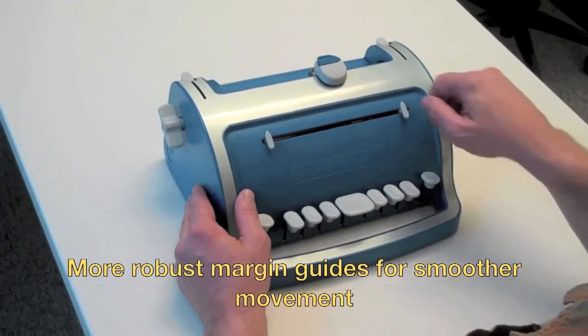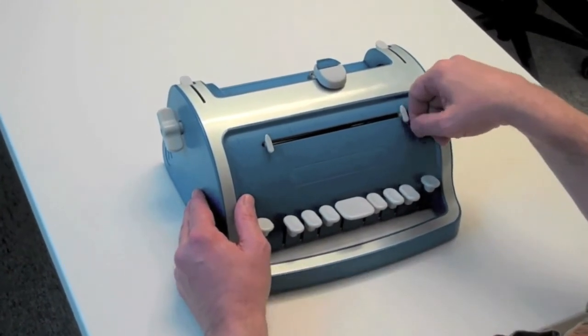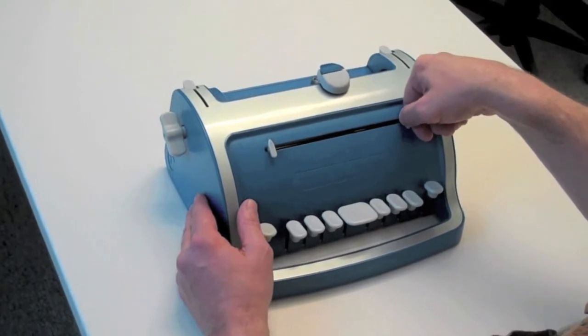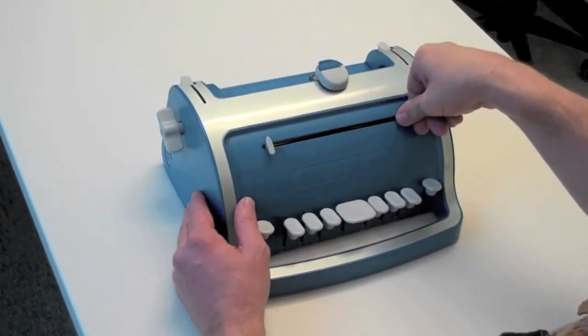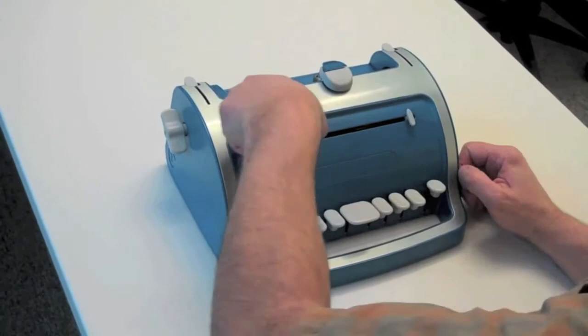Okay, I'd like to bring your attention to the margin guides. The margin guides have been made with a much stronger material. They grip easier and they hold a lot tighter.